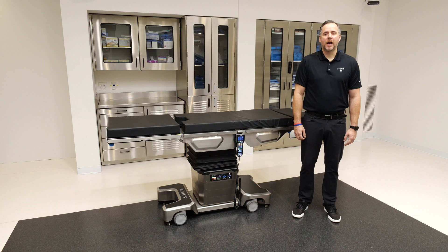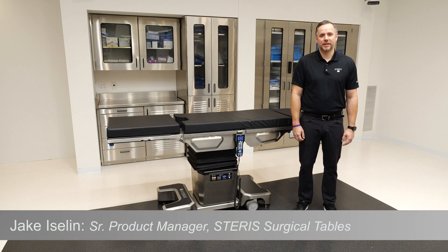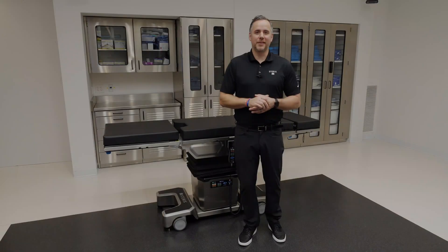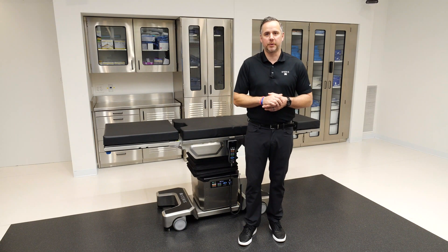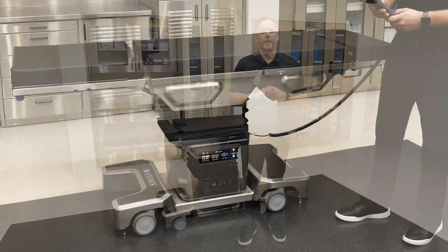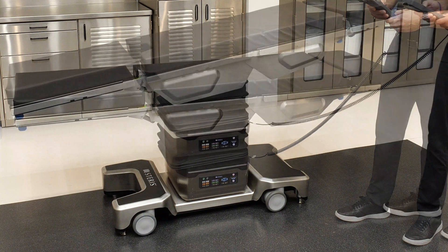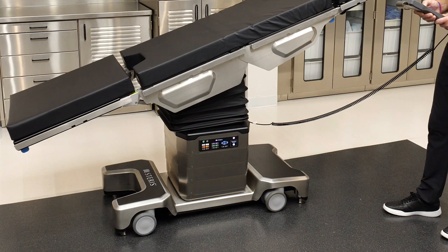Hello and welcome. I'm Jake Islund, a senior product manager here at Steris Corporation. I'm here today to offer an in-service on the 7080 general surgical table. The 7080 is Steris's first all-electric surgical table and our most premium surgical table. It's ideal for all patients, all ages, and all sizes. However, it's going to excel in highly complex procedures, the largest patients, and the sickest patients.